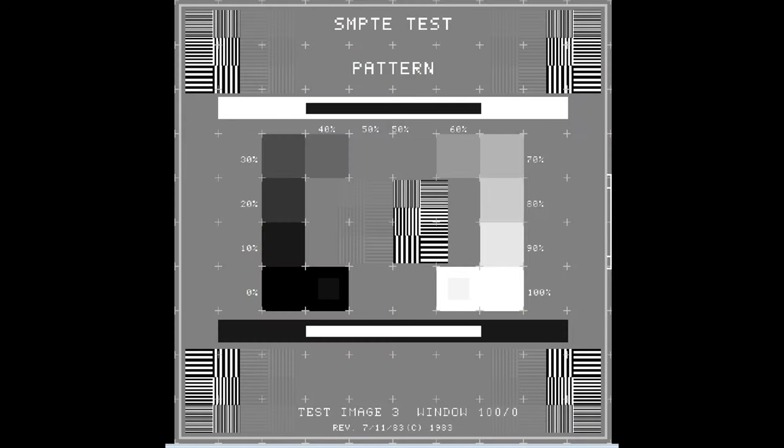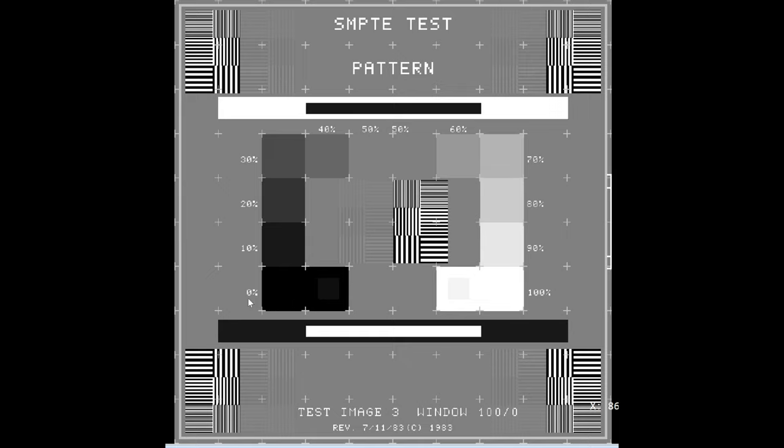So here I've brought up a SMPTE pattern in a DICOM viewer. This is what the SMPTE pattern is going to look like on all of the CT scanners. So with this pattern, what you're going to notice is you have a black patch right here. And that's labeled 0%. And then you go to a 10% patch right here. And it shows you that it's 10%. And here's your 20% patch.